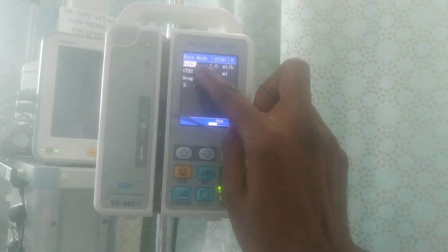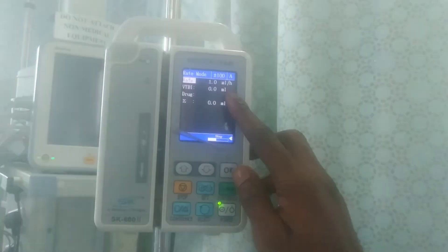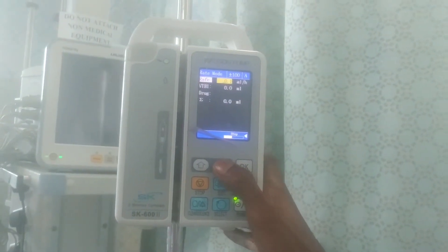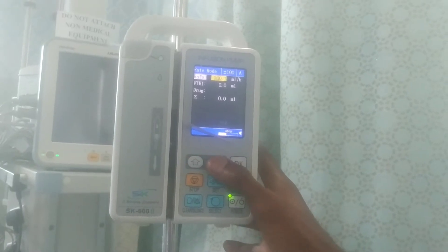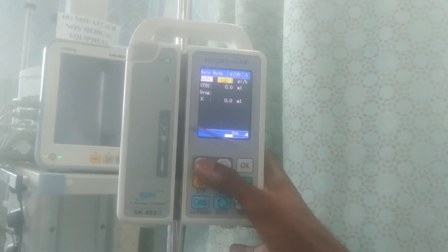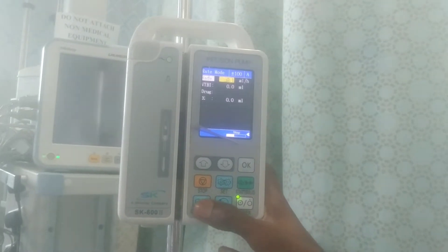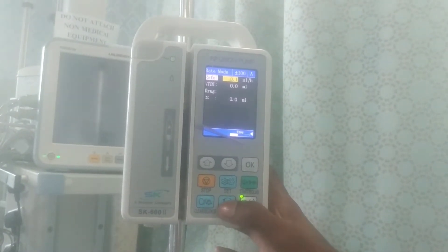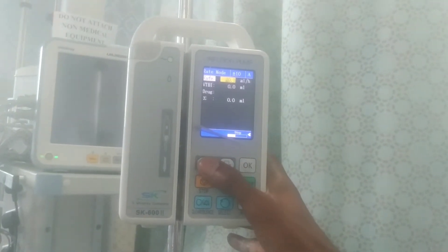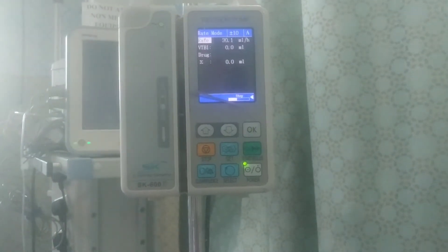This is the rate at which you want your infusion to run. To set it, you click OK and then manipulate the number up or down to set the rate you want. You can change the number shown on screen. When you are done setting the rate, press the OK button to confirm.